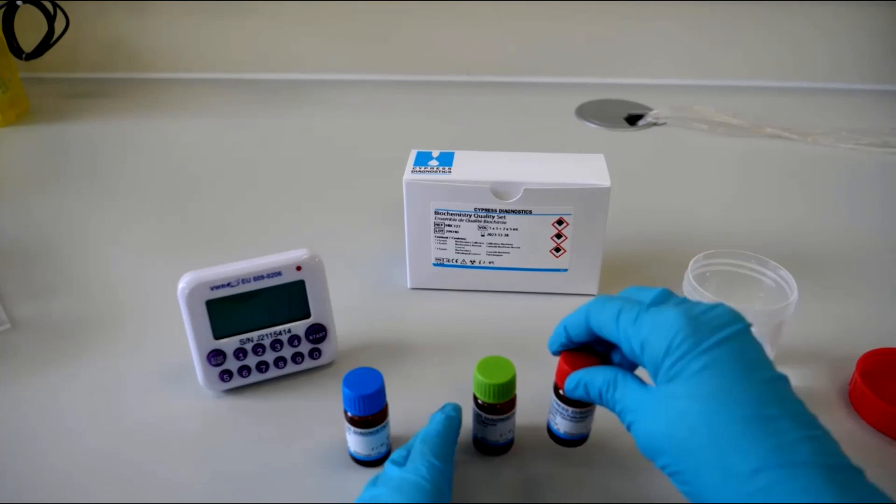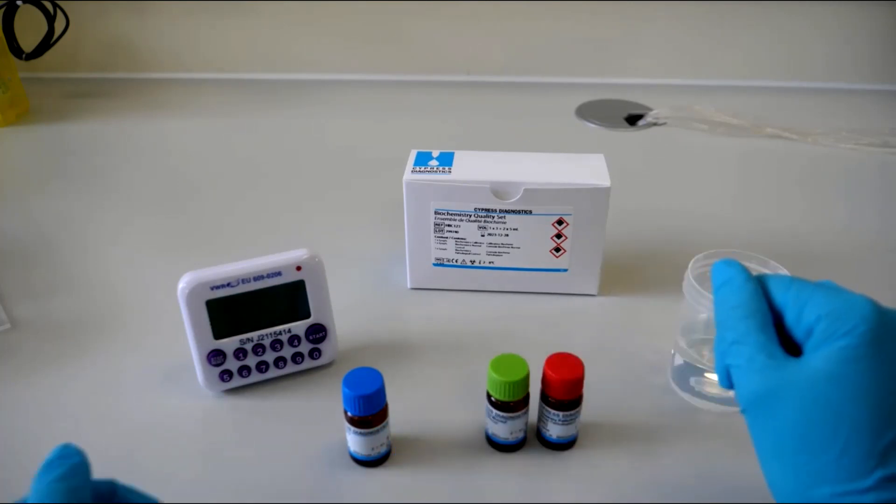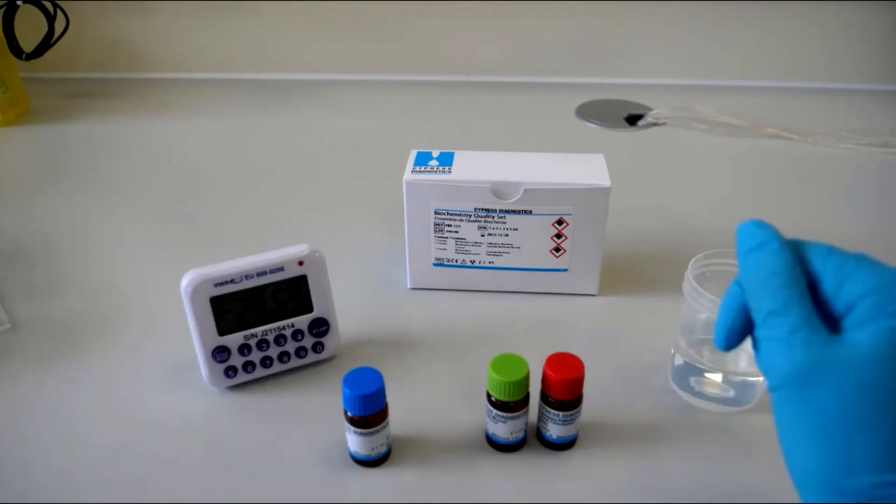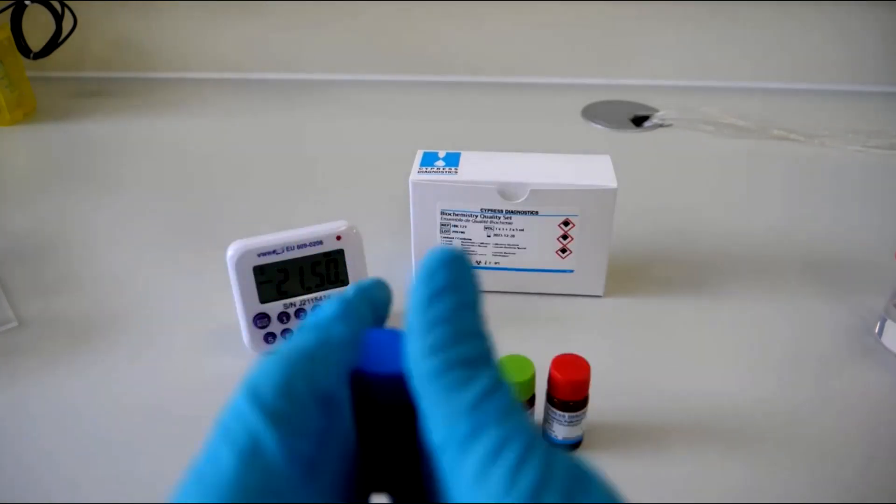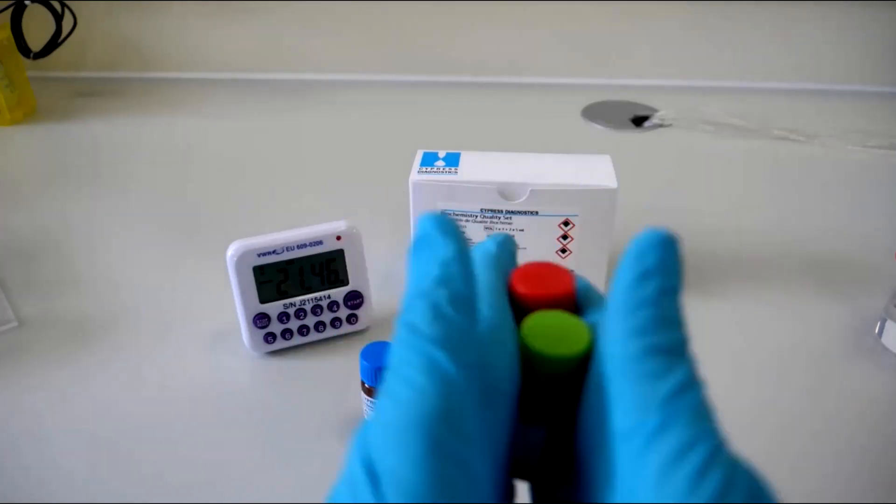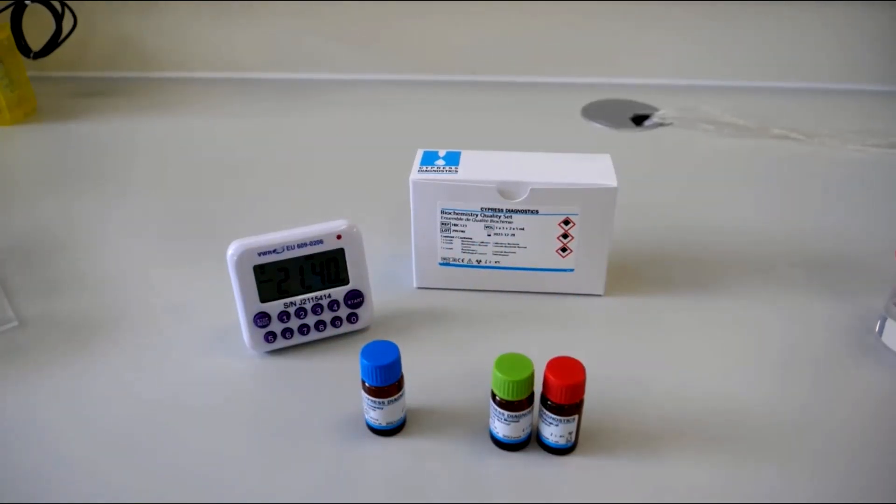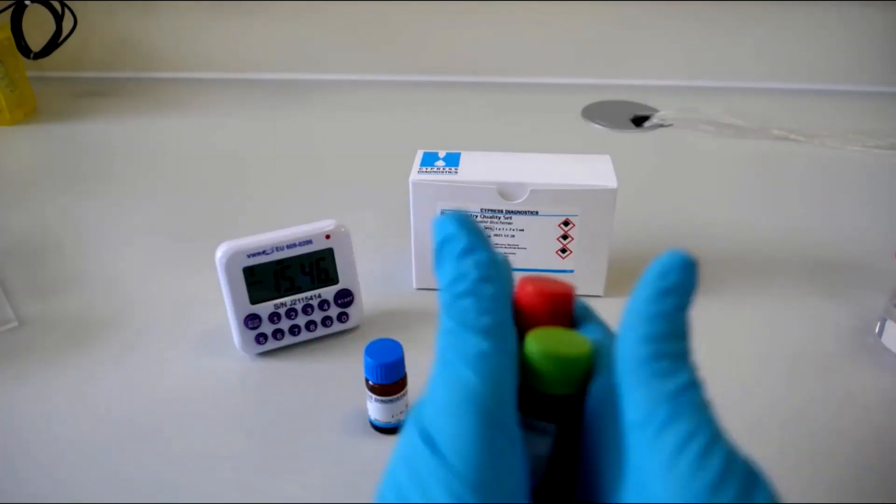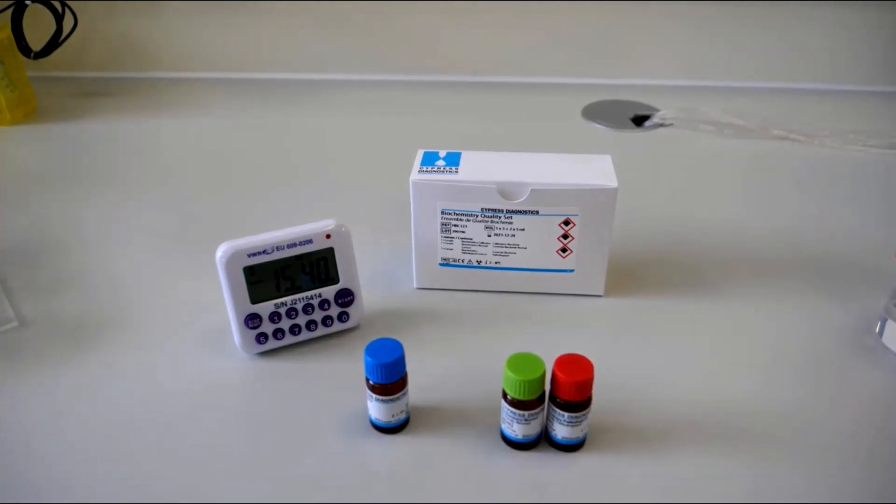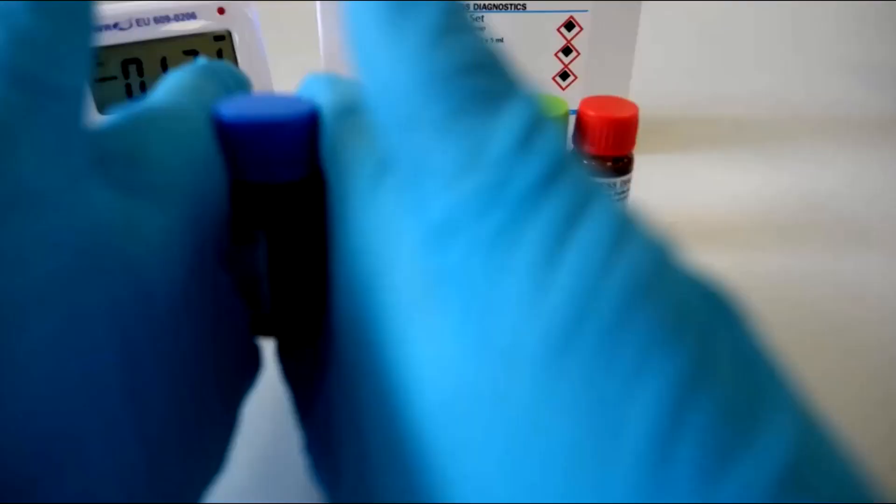Close the vials and allow them to stand for 30 minutes. Gently swirl the vials to homogenize the solutions. Repeat a couple of times during the reconstitution time. Do not shake, vortex or invert the vials.